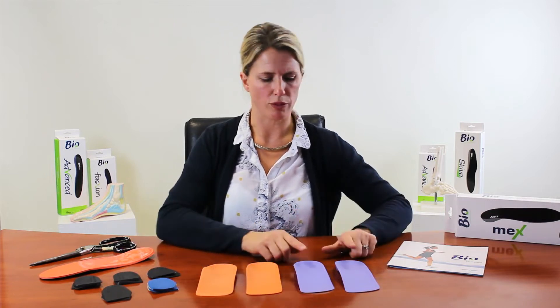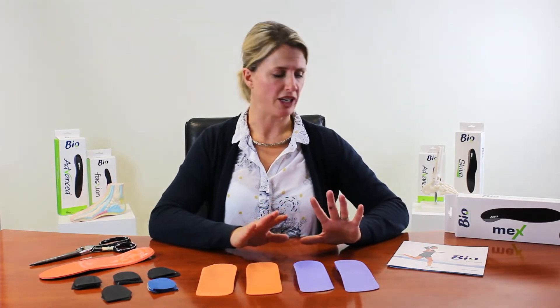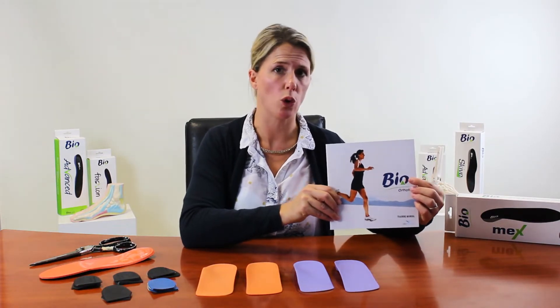A good way to guide selection is the supination resistance test. If the patient has high supination resistance, you want a stiffer material — one of the orange ones. If they have low supination resistance, you can use one of the lower density ones. For more information, have a look at the training manual; if you don't have one, call the LBG office and they'll send one out.